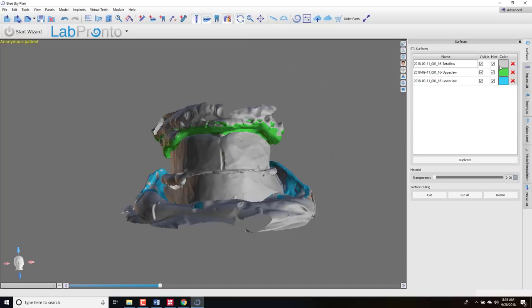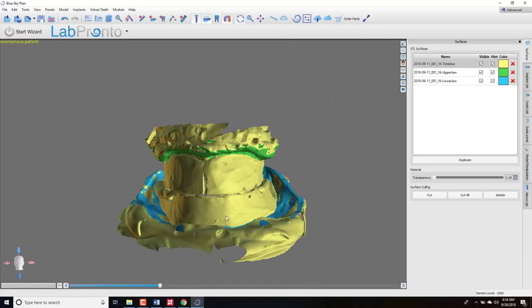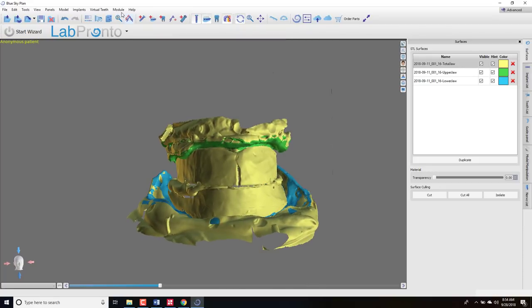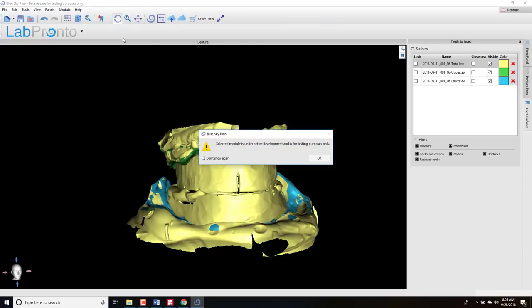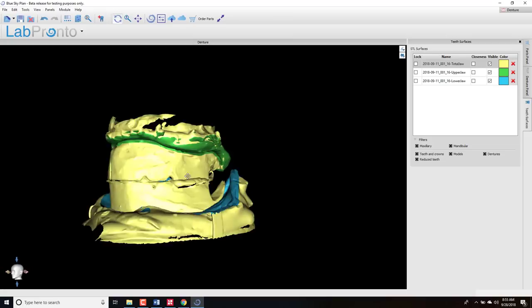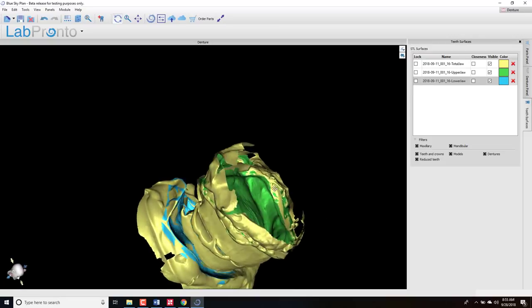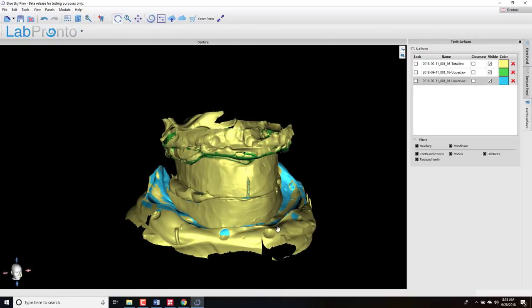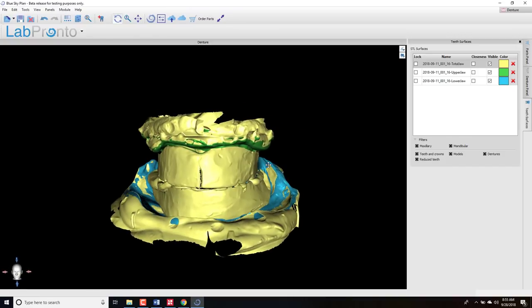We can turn models on and off, change their colors. Now that we've oriented and imported all the models we're going to use in the case, we're ready to switch to digital denture mode. Go up to Module at the top, go to the bottom, and click Denture. Now we're in denture mode — the view changes a bit, you only have the 3D view to work with, and the menu becomes much simplified because we don't need all those surgical guide components. Now we can begin the process of doing the dentures.